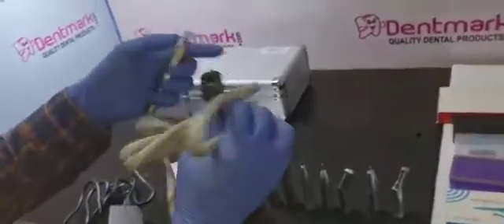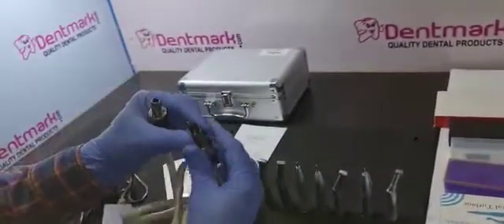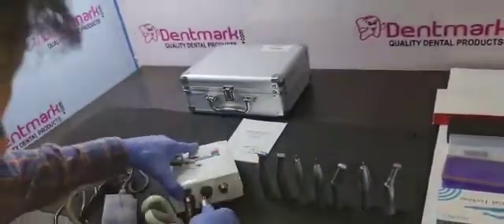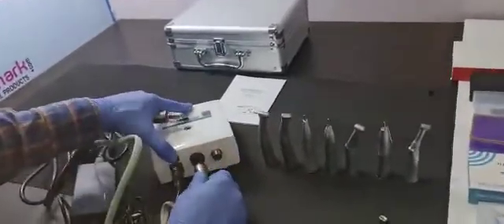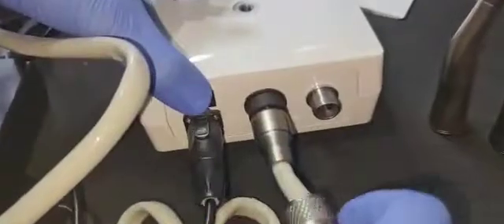So now this is the motor. There is a cut. Attach this motor on the back side of this control box. This is the point.